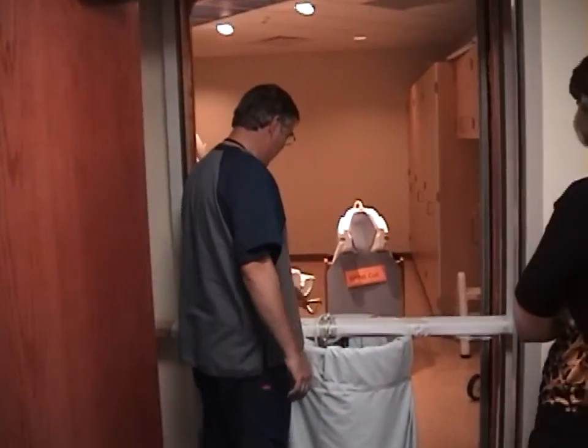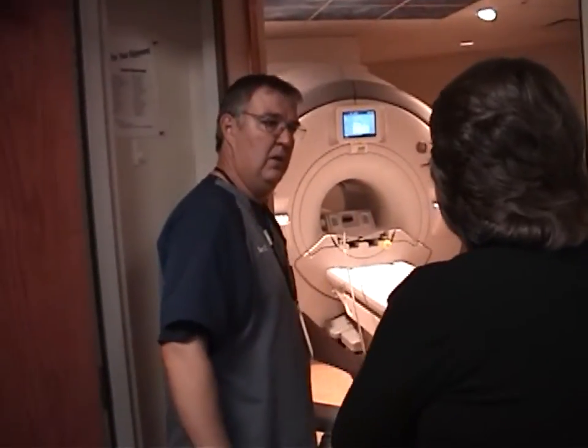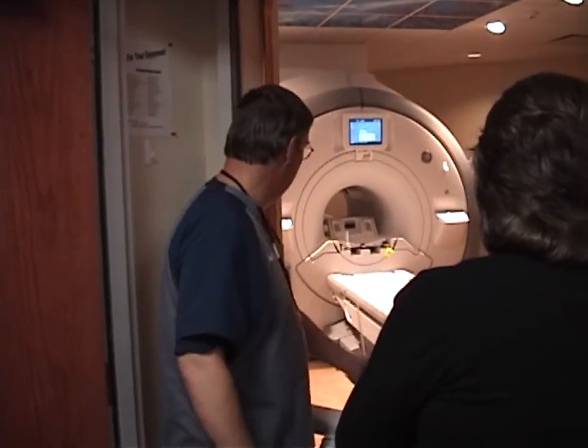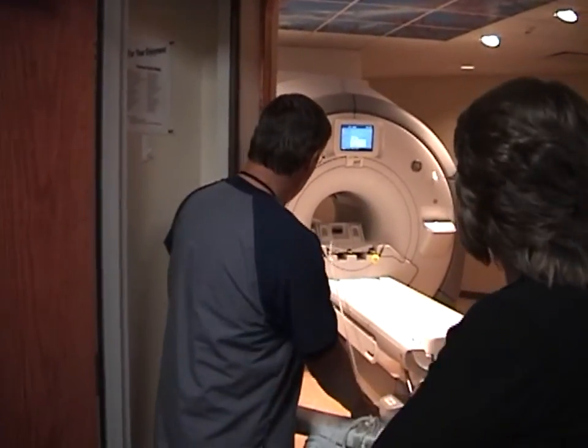This is the scanner, and this object is just being held in place by the magnetic field — so you can pull it off. It's not attached to anything. Someone joked: 'I thought that was an invisible dog.' Yeah, it's the invisible dog!